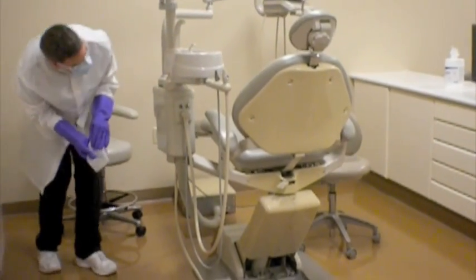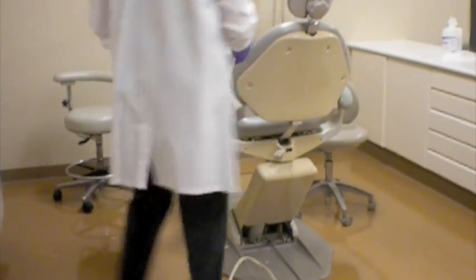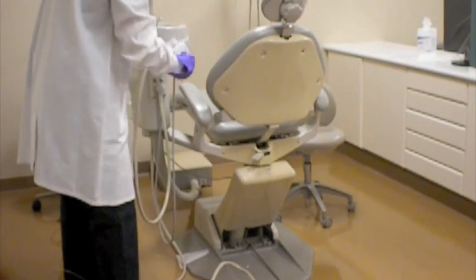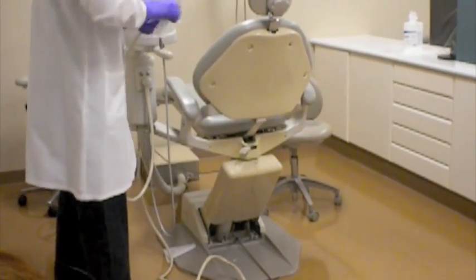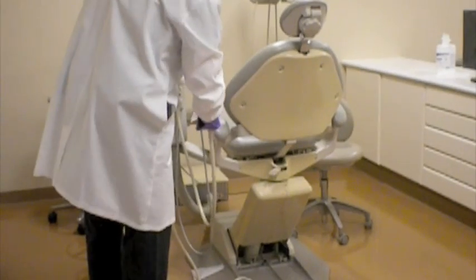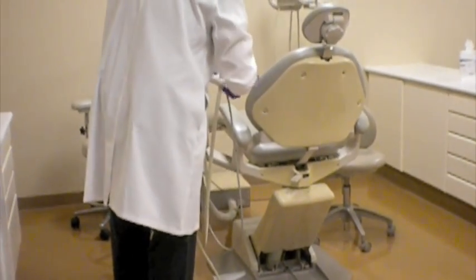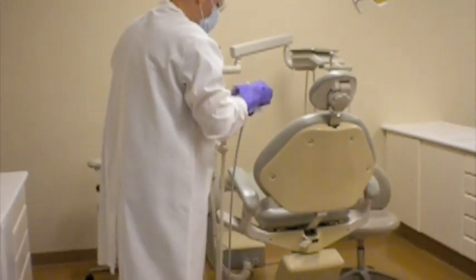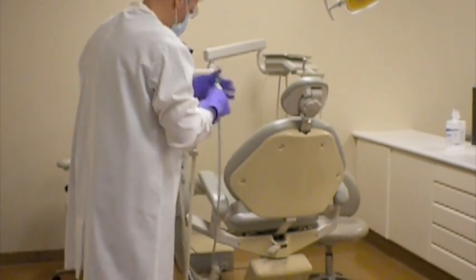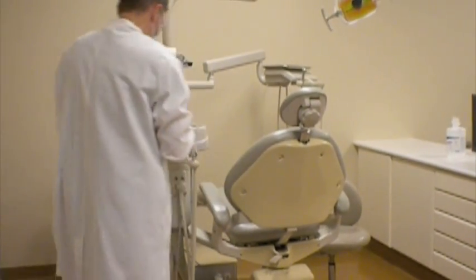He's going to move to the bracket arm over here once he finishes that evacuation box, and he's going to wipe the bracket arm, the receptacle that holds the hoses, and he's going to wipe the evacuation hoses 6 inches down only as a top. The rest we'll wipe as a base. So the high-speed evacuation, the slow-speed evacuation, he's wiping it again top to bottom, 6 inches down.